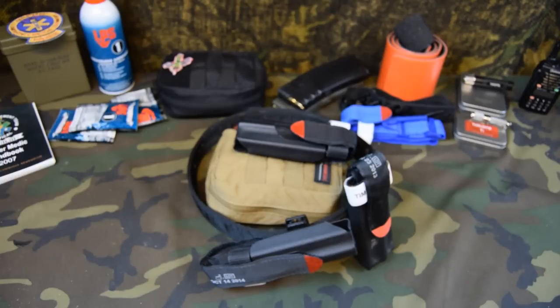Hey, welcome to another video from Skinny Medic. I want to do a quick follow-up video for you. I recently did a video on the CAT tourniquet holster I designed. We've had a lot of requests for a couple of different ways to mount it, so we've come up with a few different options. This is kind of a follow-up review video on the Skinny Medic CAT tourniquet holster.